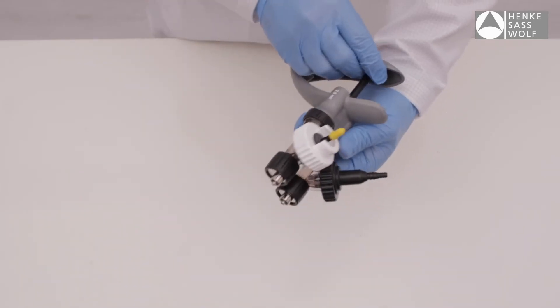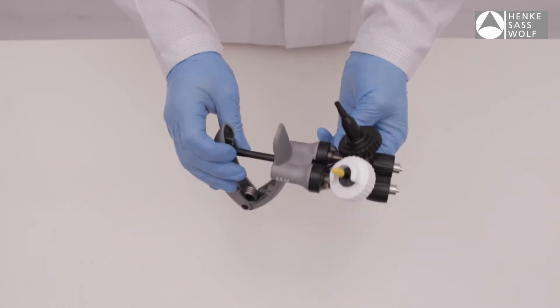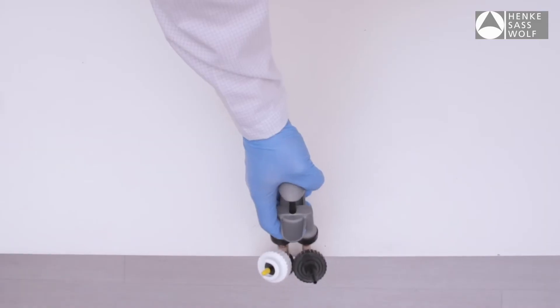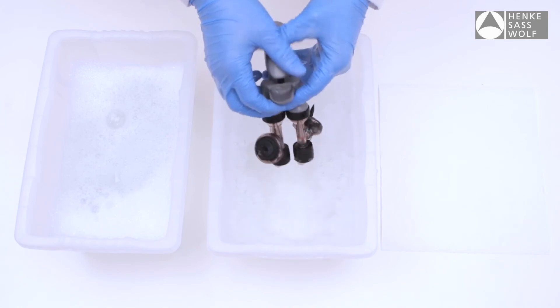In case the syringe is drawing air, the front valve behind the metal needle nut might be closed. The valves can be released by gently tapping the front of the syringe against an object, such as the edge of a table, and afterwards rinsing the syringe with warm water.